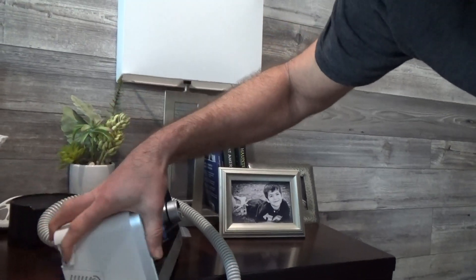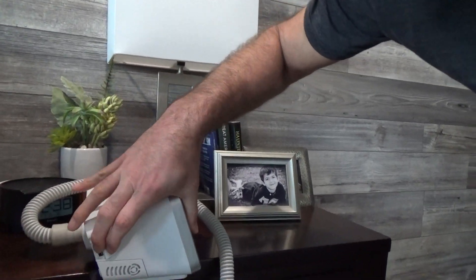Now, what we care about is this guy. SD card's missing. But what I really, really wanted to see is if there is some kind of way we can get data off of this thing. If we can get data off of this machine, then we don't have to be beholden to other people to share our data with us. We have access to our own data, and that's what I want.